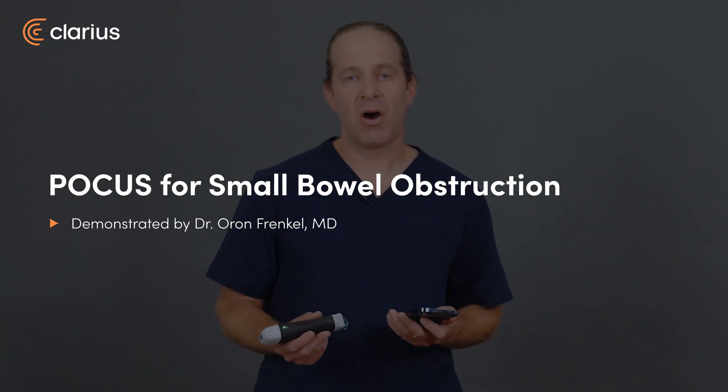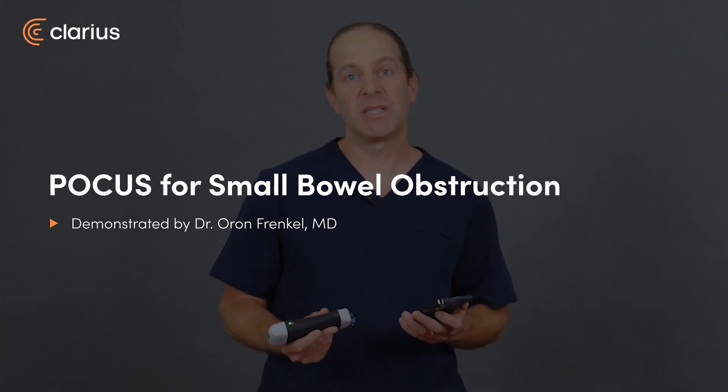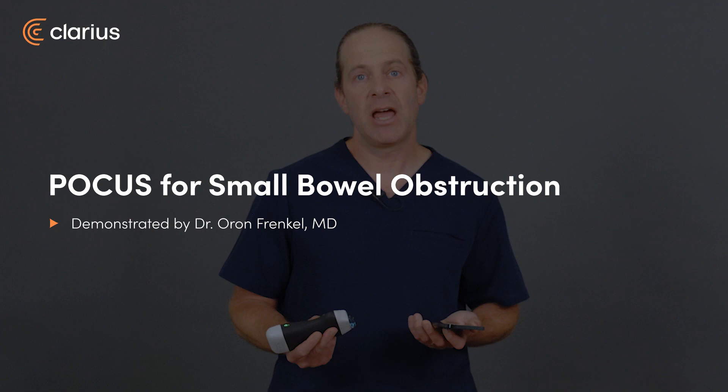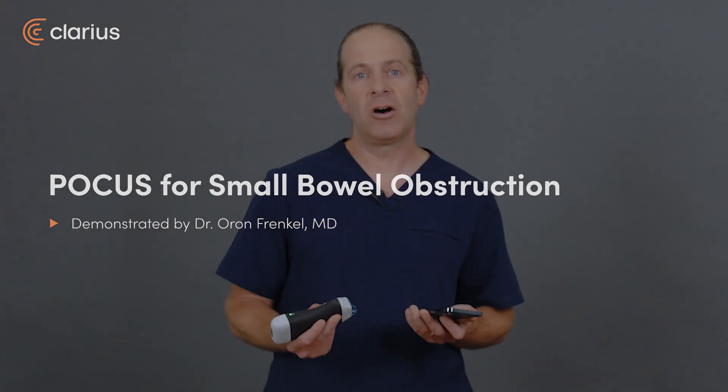Patients frequently present to the ER with nonspecific abdominal pain complaints, and one of the elements on our differential diagnosis is often a small bowel obstruction. X-ray fares very poorly in this domain where ultrasound really excels in trying to change your pretest probability of a bowel obstruction.